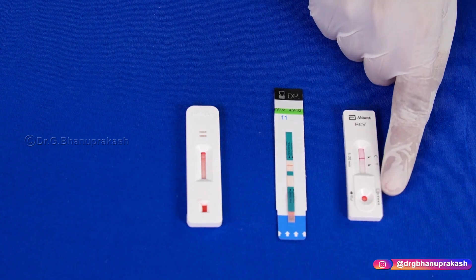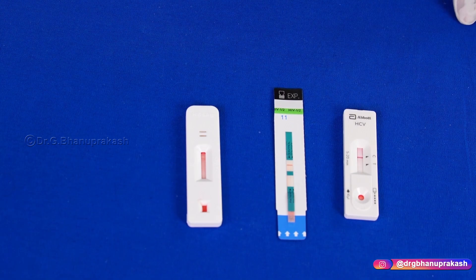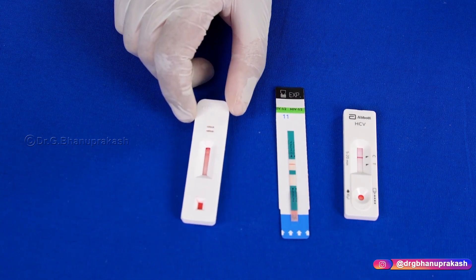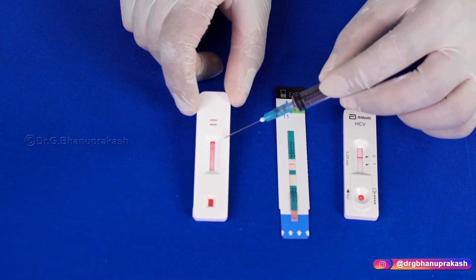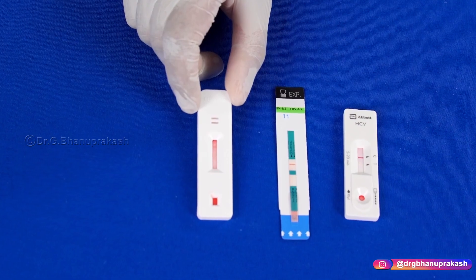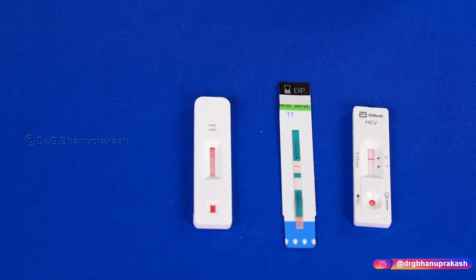As you can see in this patient, there is one line on C, which means it is negative. If you find a double line it is positive; if there is only a single line, it is negative. Here you can see only a single line on the HIV test kit. For HBsAg, you can see there is a small shadow — a line present near C which is the control — meaning this patient is also HBsAg negative.